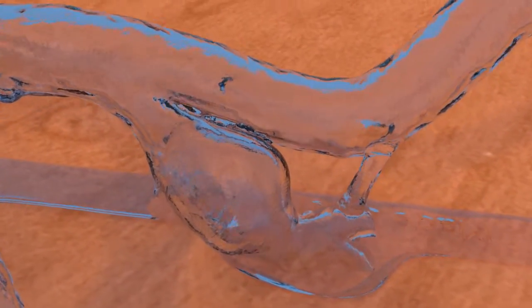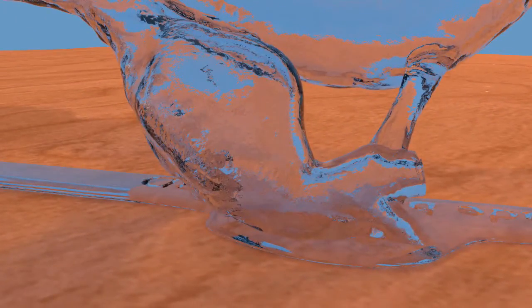A 33mm long, 23mm diameter fusiform internal iliac artery aneurysm has been added on the left.